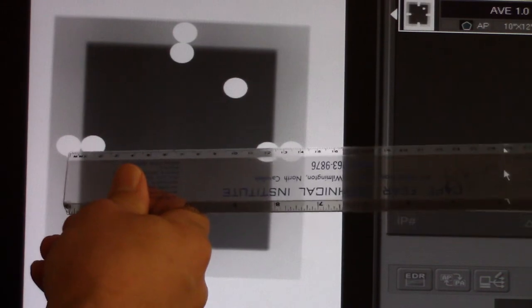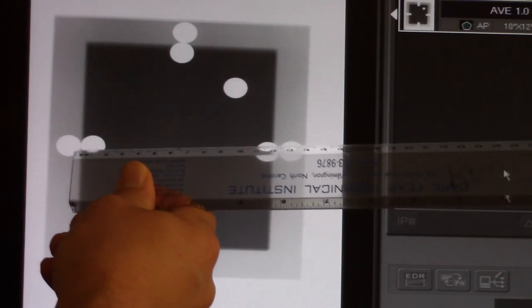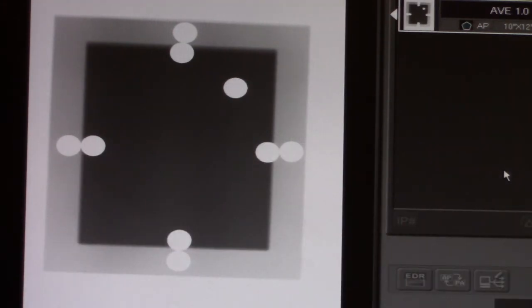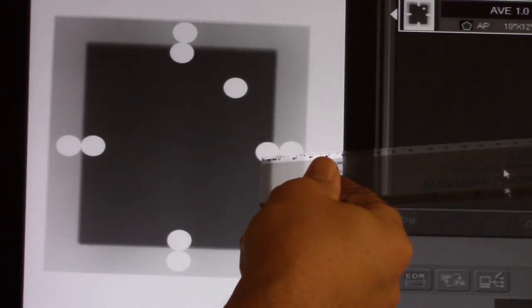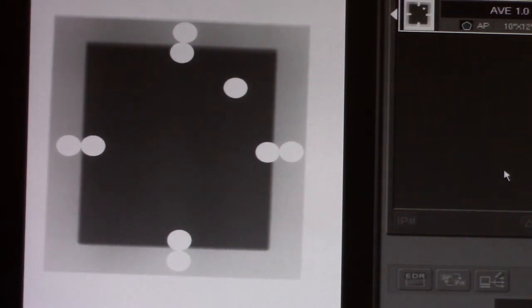At the anode end of the tube I'm off by maybe two millimeters. Towards the door I'm off by about four millimeters. At the cathode end of the tube I'm off by about five millimeters. I'm allowed to be off by 20 millimeters on any given side, so I'm gold. I'm off by at most five millimeters on one side.